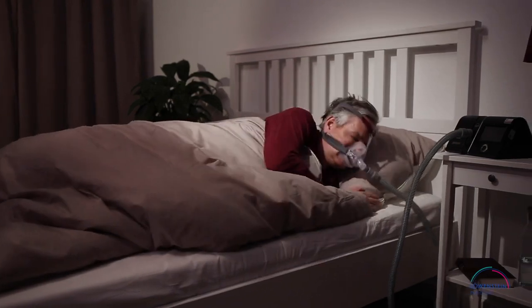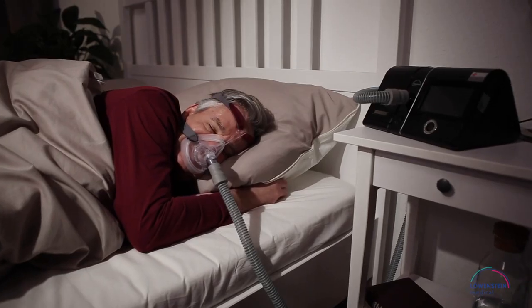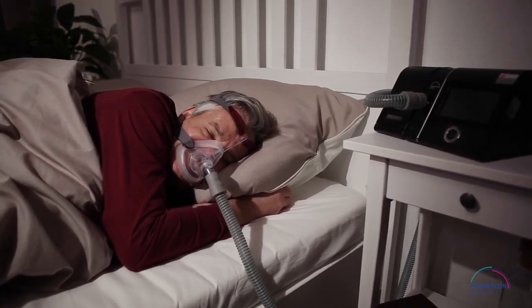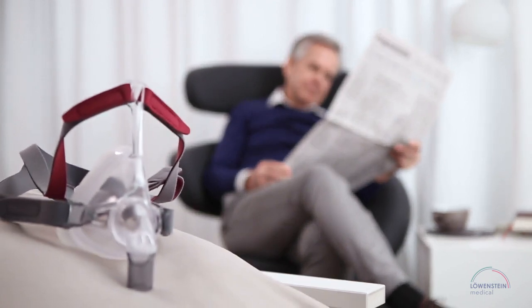Spend an excellent night with Cara Fullface. You'll hardly notice the pleasantly light mask with the soft and supple mask cushion. Face the new day fully rested and relaxed thanks to Cara Fullface from Löwenstein Medical.